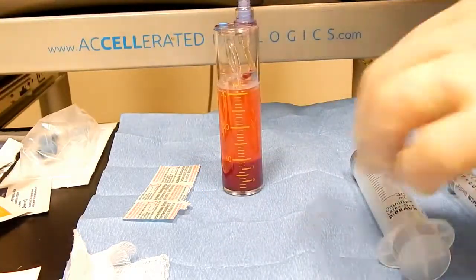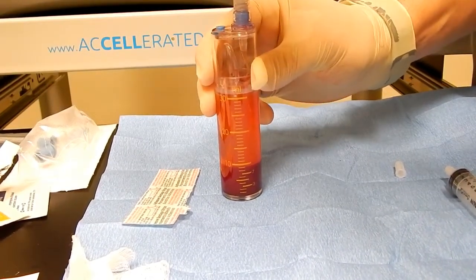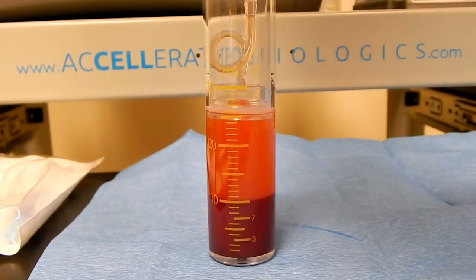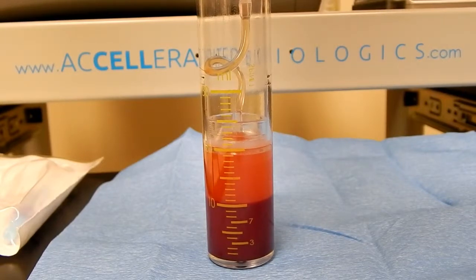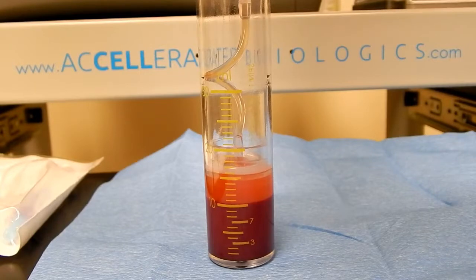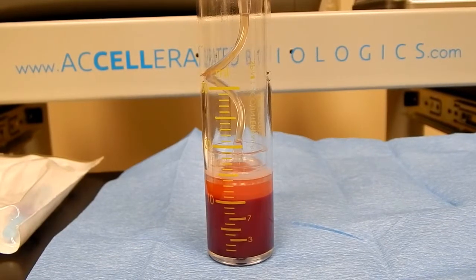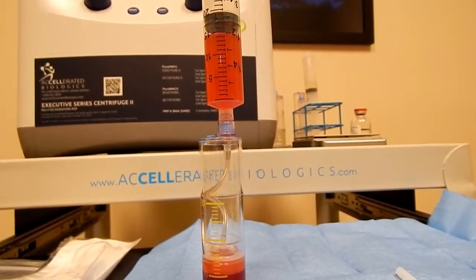Using aseptic technique, use our next 30 ml syringe, place it onto the device, and we are going to aspirate out all of the excess plasma. As we are aspirating, the disc is getting lowered. The tube is 1 ml and the cone is about 1.5 ml. So when we bring the bottom of the disc even with the red blood cell interface, we know we have trapped the perfect amount of plasma to now pull up our PRP sample. All of the extra plasma is collected in the syringe, then remove this syringe.